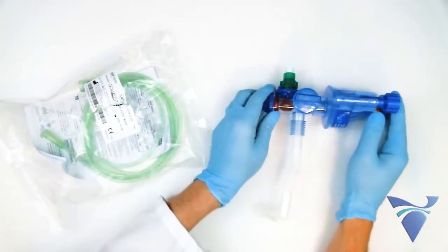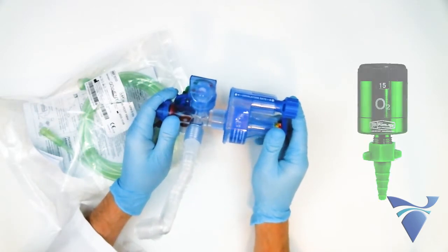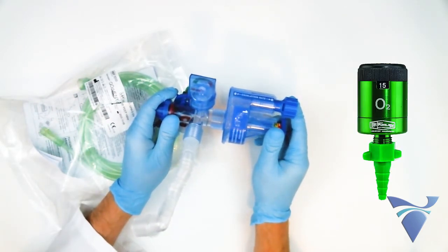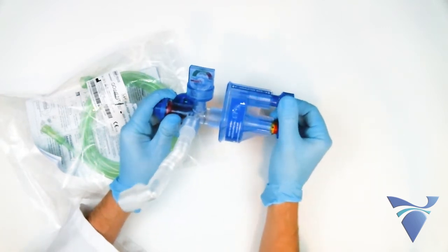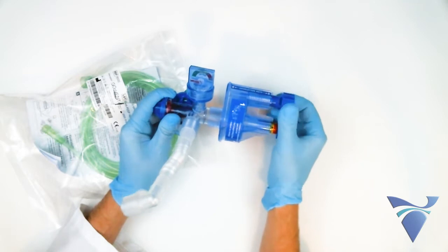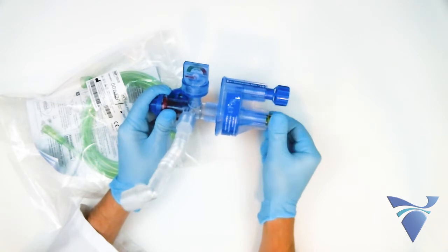Using the GoToVent involves three simple steps. Step 1 is to adjust inspiratory time using your flow meter, Step 2 is to adjust expiratory time using the round rate knob, and Step 3 is to adjust peak inspiratory pressure using the T-shaped pressure knob.